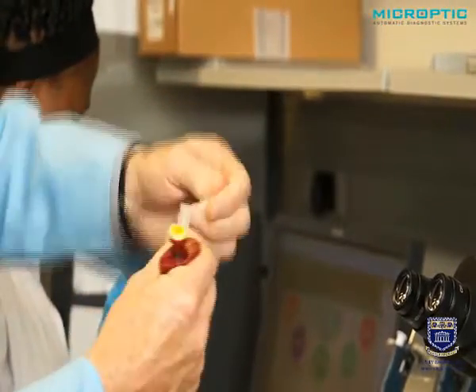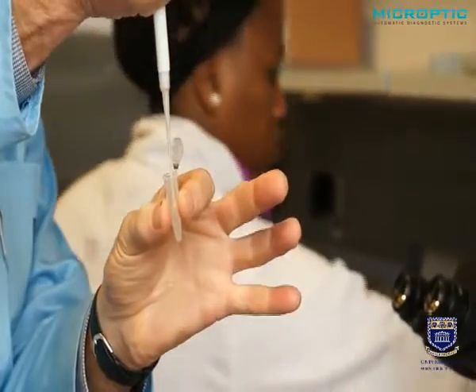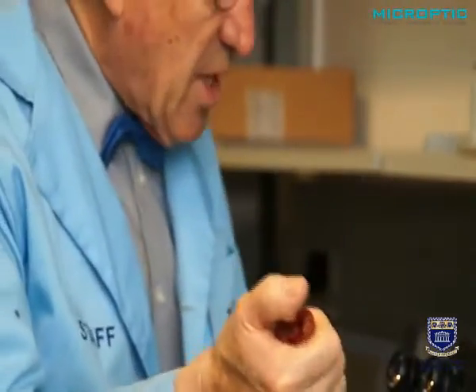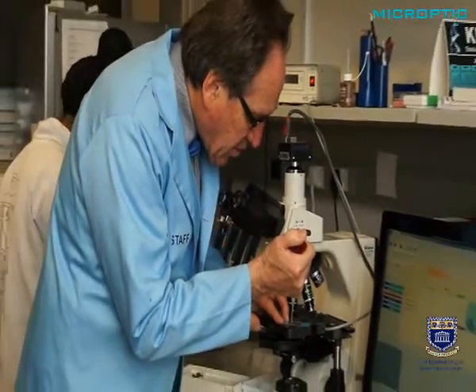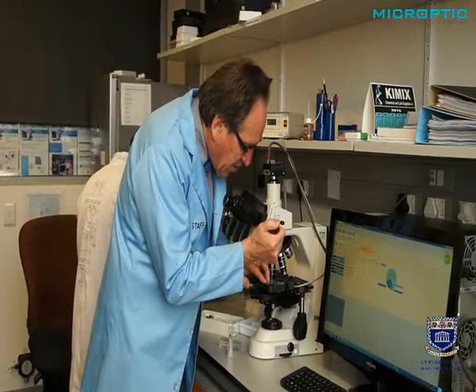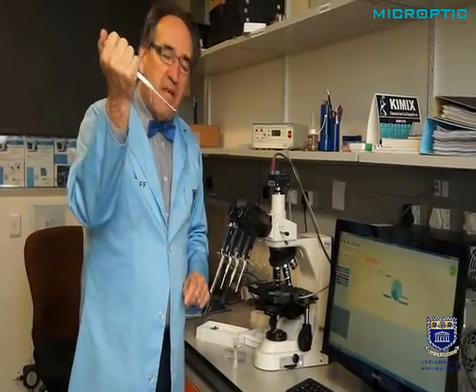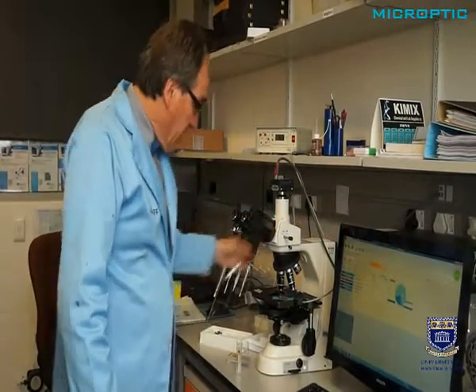take a semen sample and pipette it slowly, no air bubbles, no negative pressure, and onto the slide, which has been temperature heated, controlled, and of course inserted into your particular chamber very slowly. And what is good about this pipette is that it now displaces absolutely all the semen. No semen sticks to the sides.